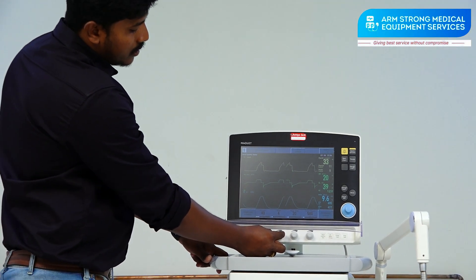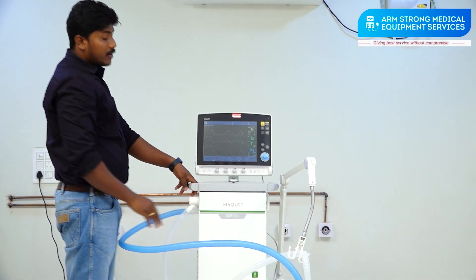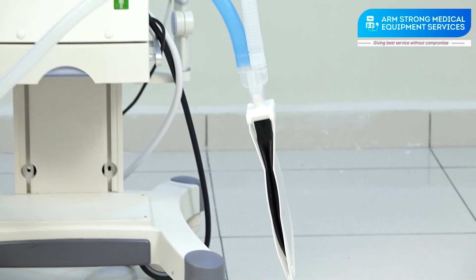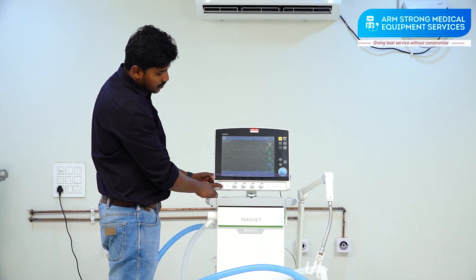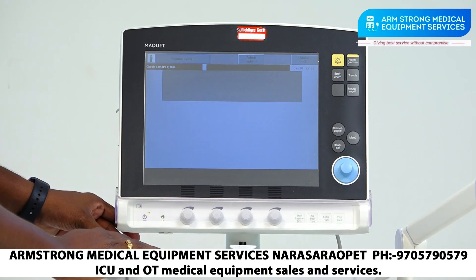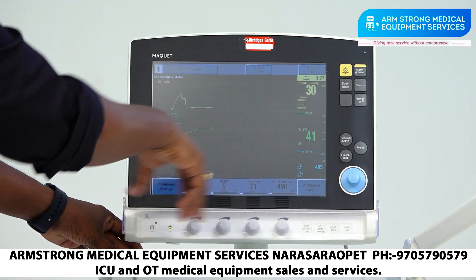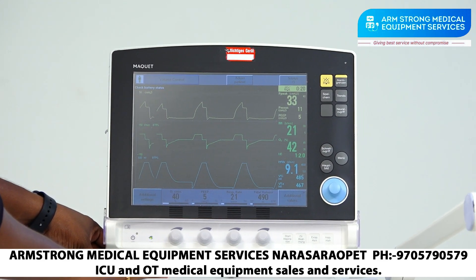By rotating the small knobs you can change PEEP, respiration rate, FiO2 concentration, and tidal volume. You can also enter patient data by selecting 'Admit Patient.' There is a standby switch — if you are moving the patient somewhere like a CT scan you can press it to go to standby. You can resume ventilation by pressing the same switch or by touching the TFT display. Note that the TFT display is more accurate with a nail touch than a skin touch.